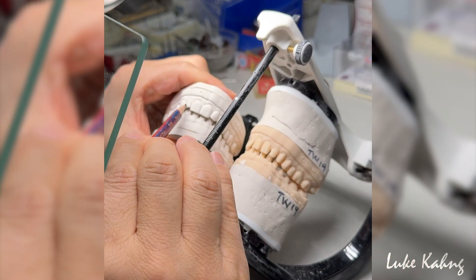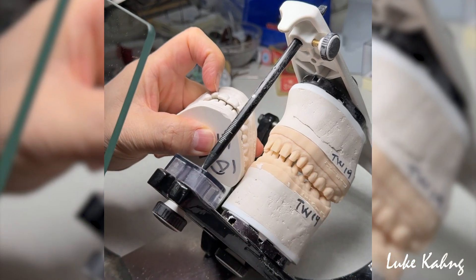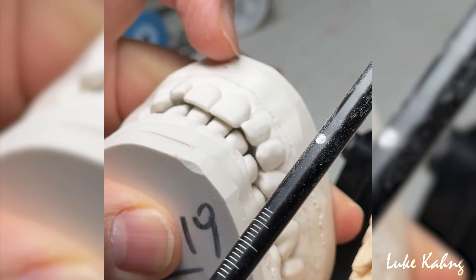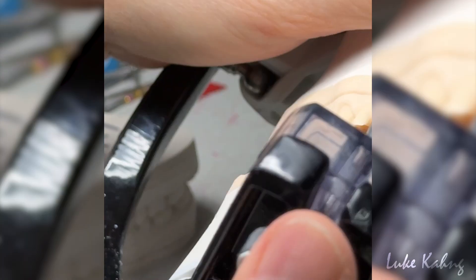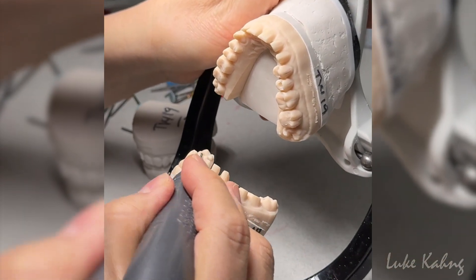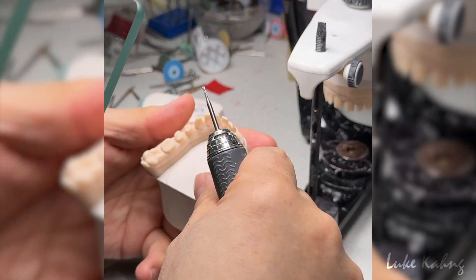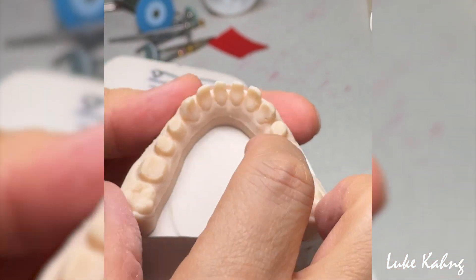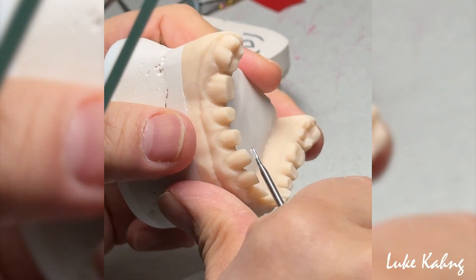This canine is sticking out. I know the doctor said veneers, but I recommend a crown for this one because I have to make a cap anyway. When I prep this, I prep the lower first and reduce the occlusion contact — we did it a little bit. Then I make the six units and make sure this one is not tilting to the other side.